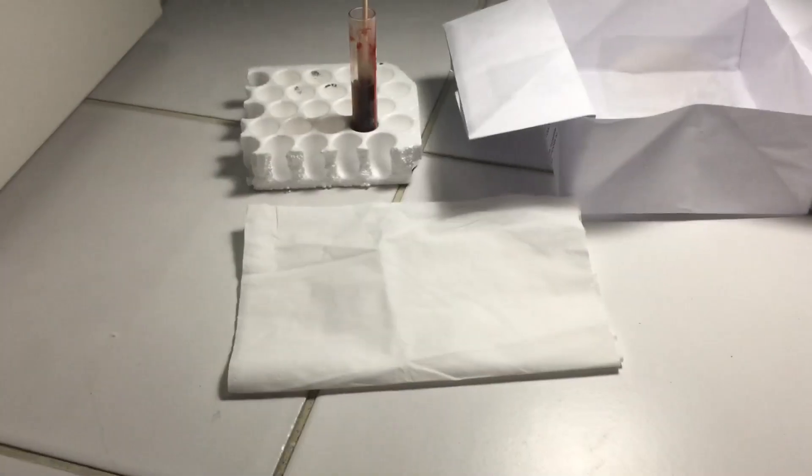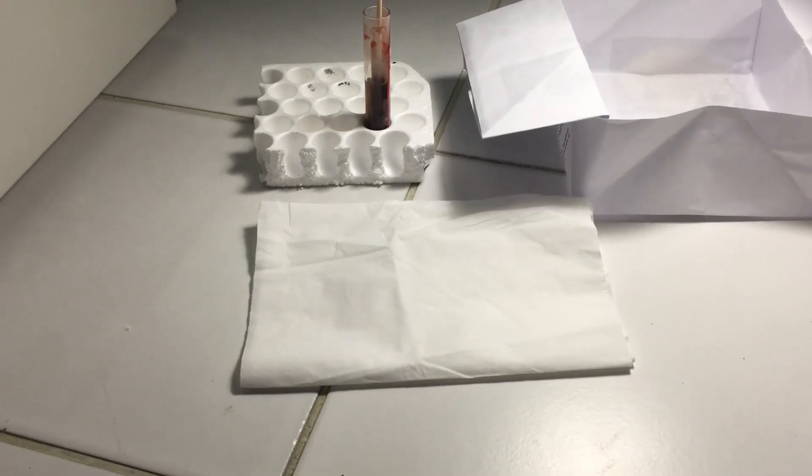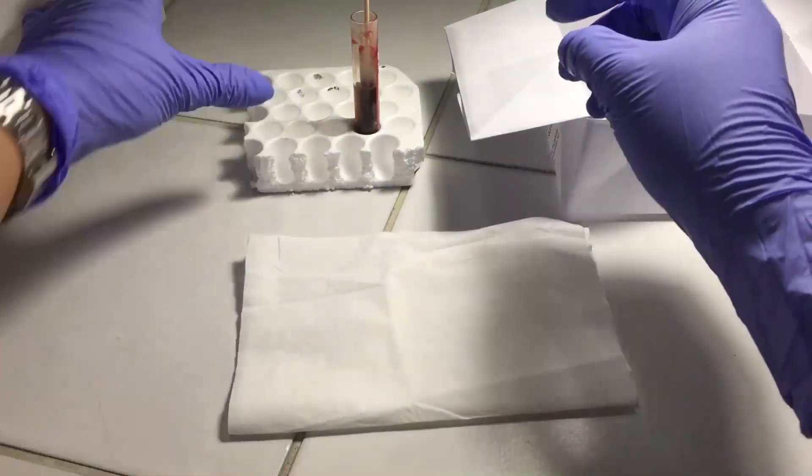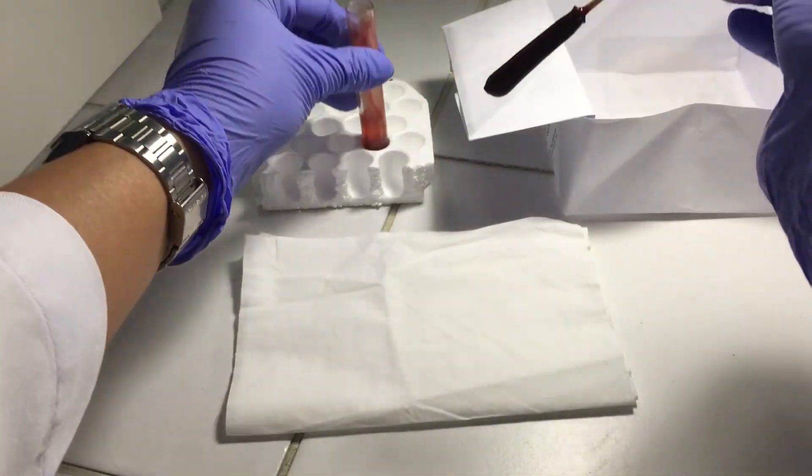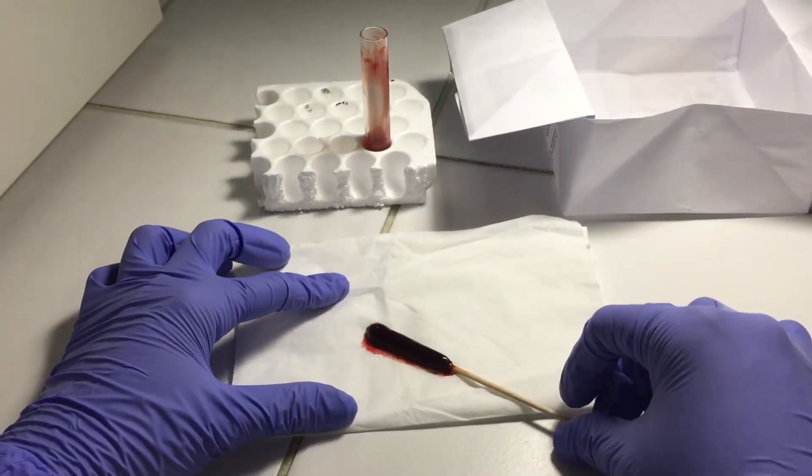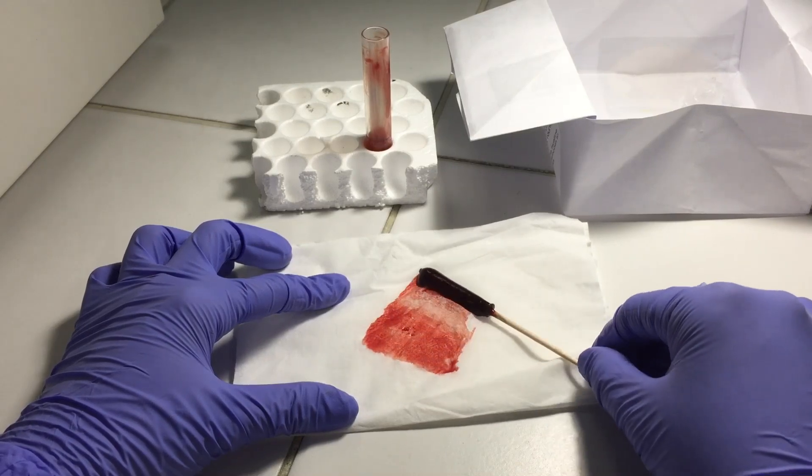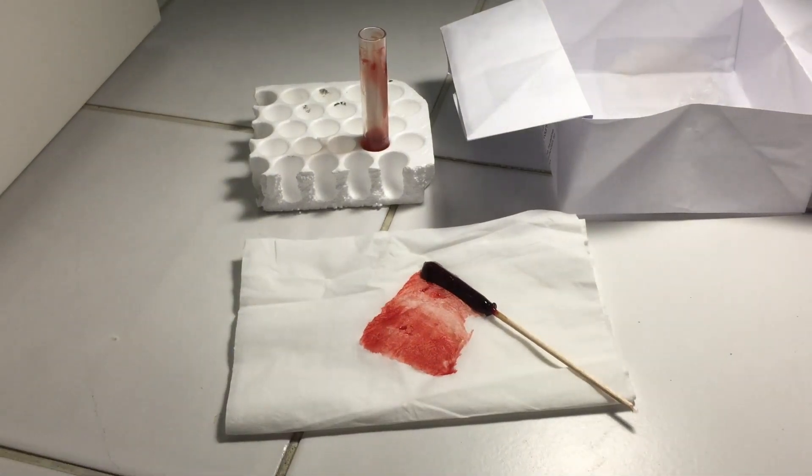We also need to assess the firmness and quality of the formed clot by pulling the stick or rod and place the clot across a paper towel. A clot is stable if few cells will come off and it will remain intact.